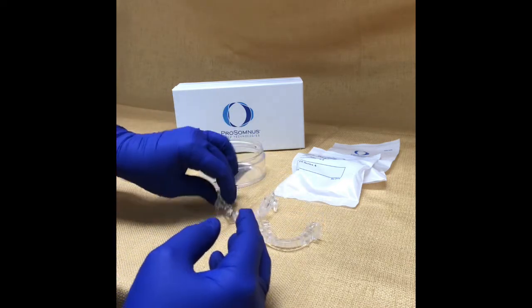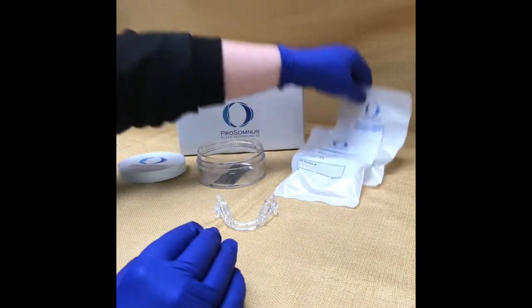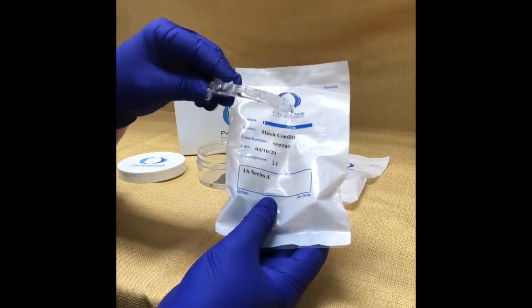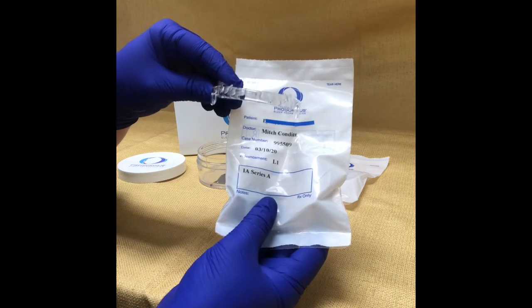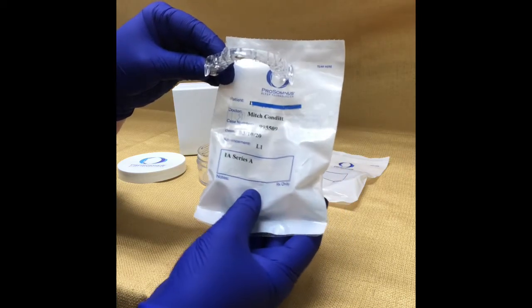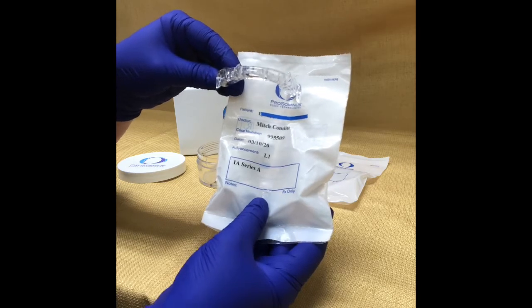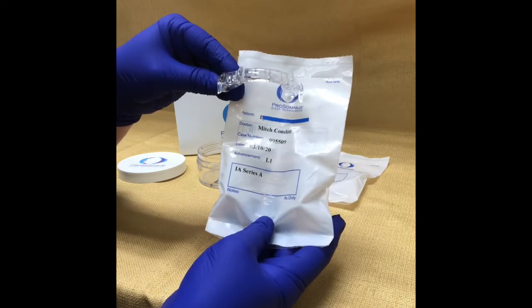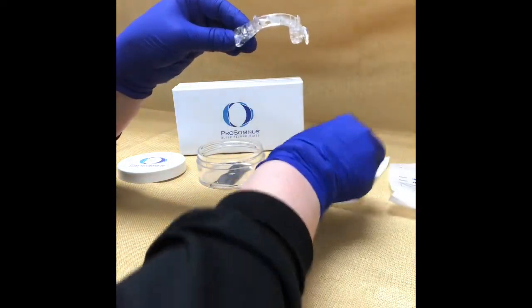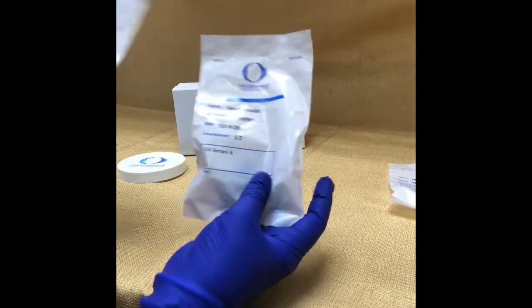So I would take away my L zero and find my L one tray. My L one tray would go with my upper zero tray — zero plus one equals one. After this combination, I'm going to go from U zero and L one to increase by one more. So I want those two numbers to equal two. Since I don't have an upper one tray in this particular case that I'm demoing, I'm going to move to a U two and back to my L zero.